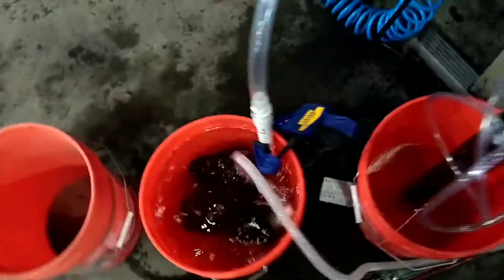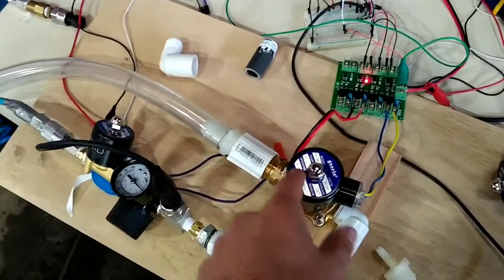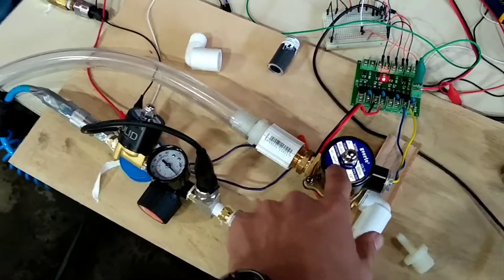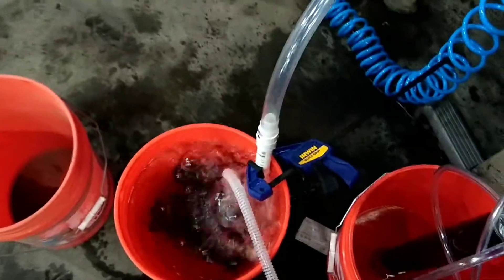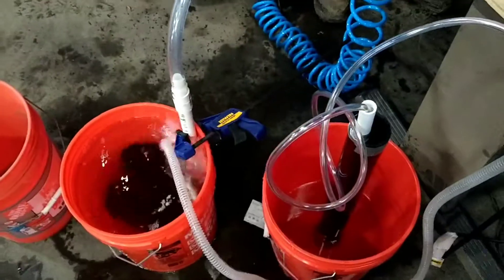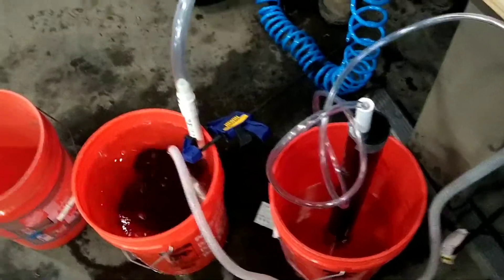Not the best setup. Coming on the exhaust side, we have a high-flow half-inch solenoid going through the exhaust tubing into our PEEP bucket. So again, not the most complicated setup, but that's what we're starting with. We'll go from there.